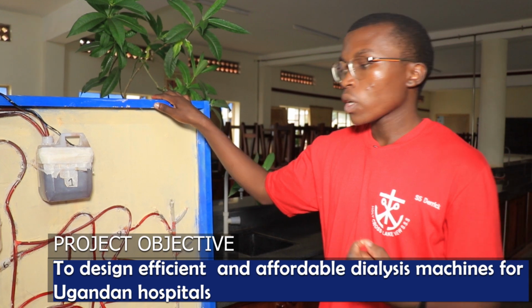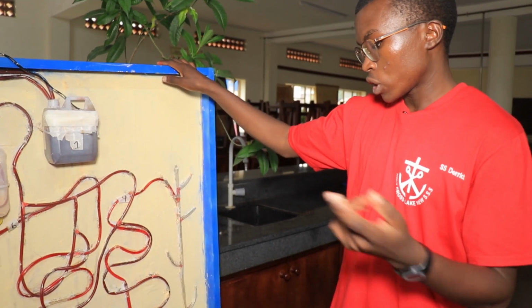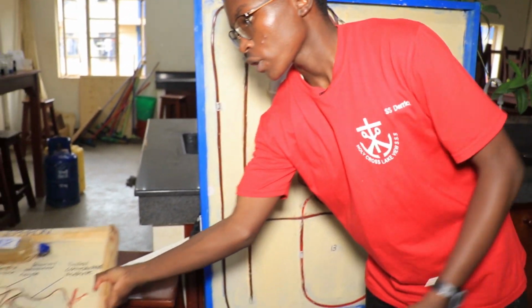I realized that in our country we have very few dialysis machines, and yet we have many people who die every year because of kidney failure. So when we realized that problem in our community and our country at large, we began this project. And we began with the nephron, which is ahead here.